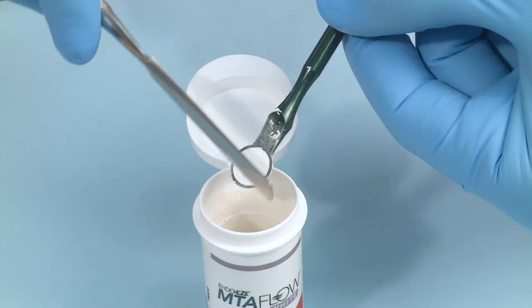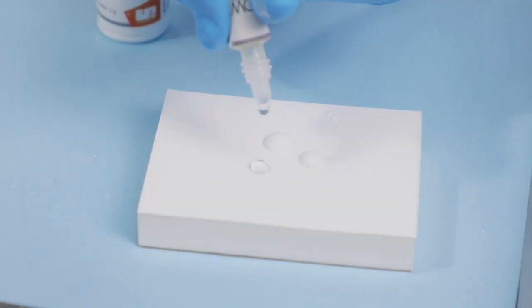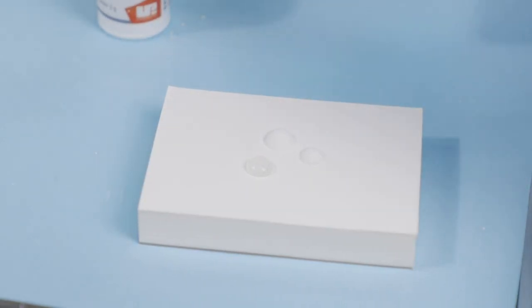Using MTA Flow is easy. Simply measure the appropriate amount of MTA powder and gel needed depending on the procedure.